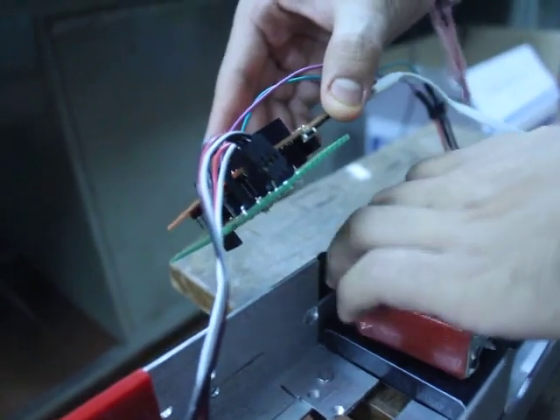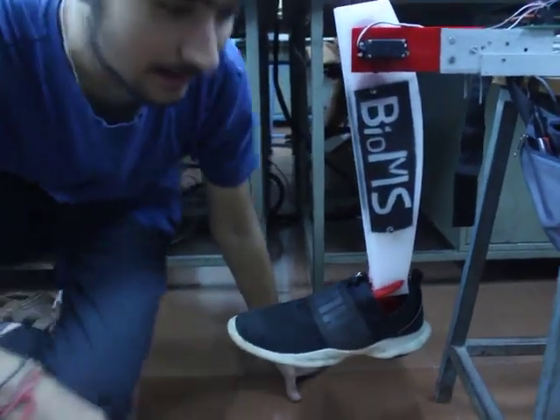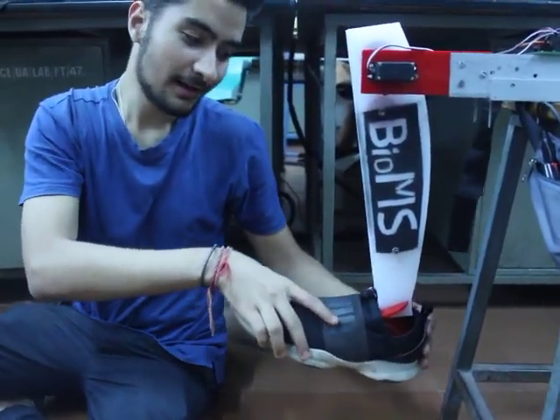These connections here are purely for representation purposes. As you can see, the leg we have made resembles the human leg in nature, and especially the human calf muscles.